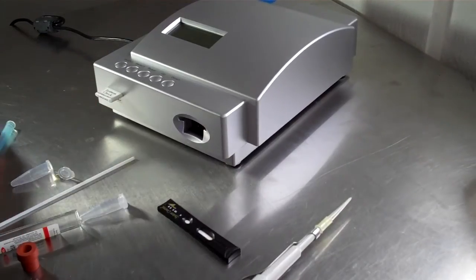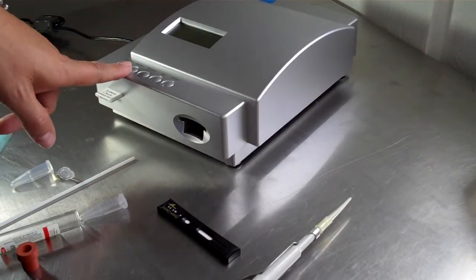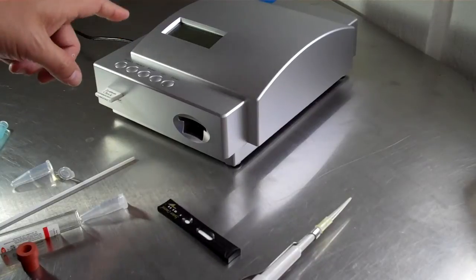You put it in the machine, and it's already in test mode. So you press select.